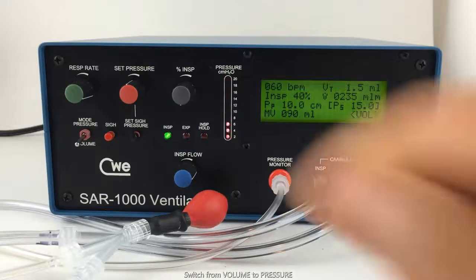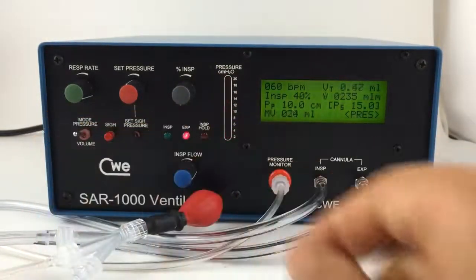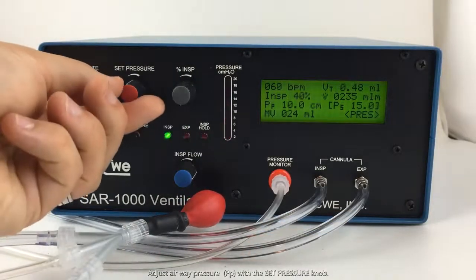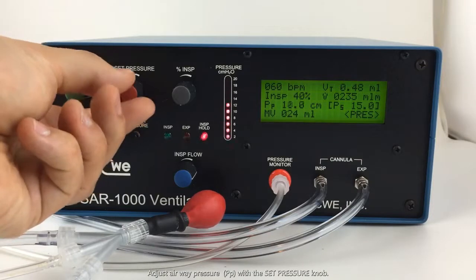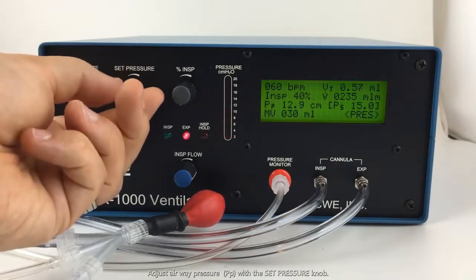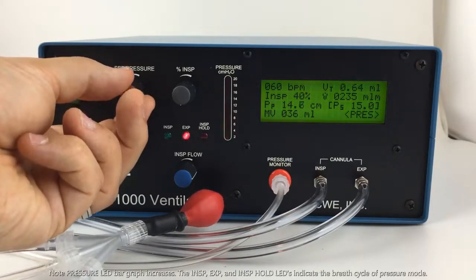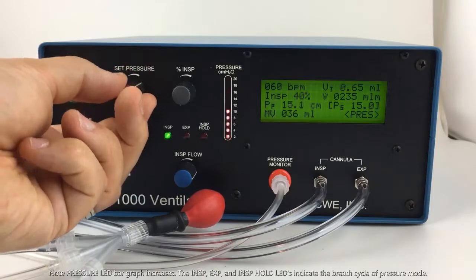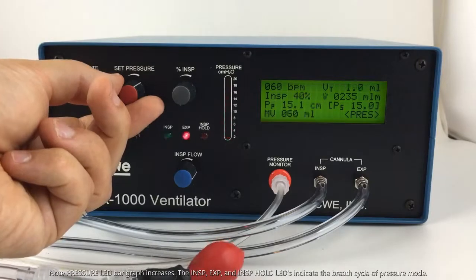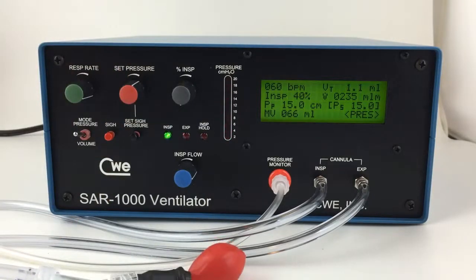To use pressure mode, change the volume pressure switch to pressure. You can then adjust this set pressure knob for the desired inspiratory pressure. You'll note, as I turn the set pressure up, the pressure bar graph increases to the desired amount.